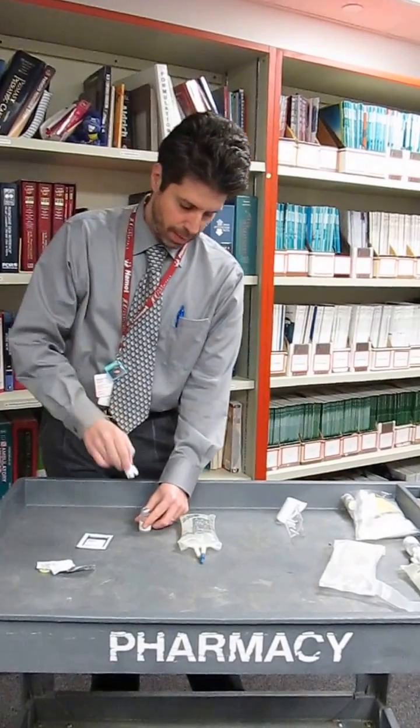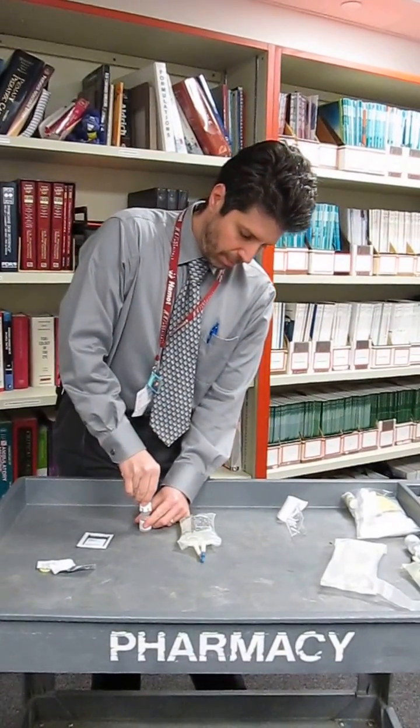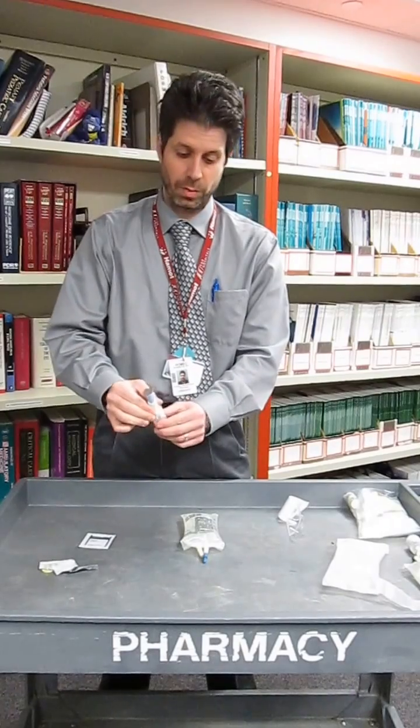We take the vial adapter part and we push that into the vial until we hear a click. Once you hear that click then it's attached and it's attached securely.